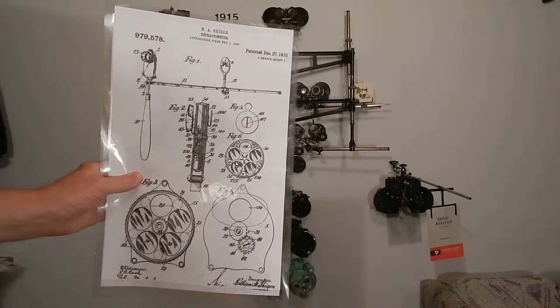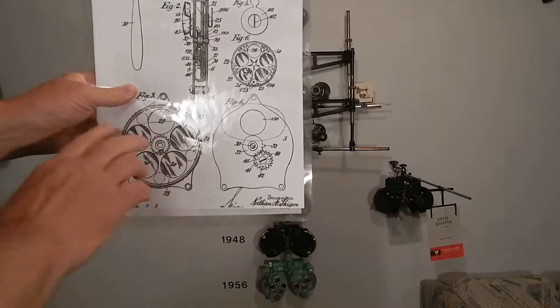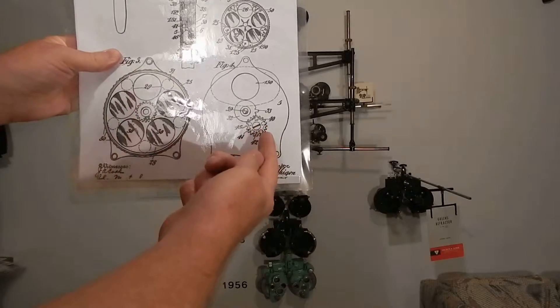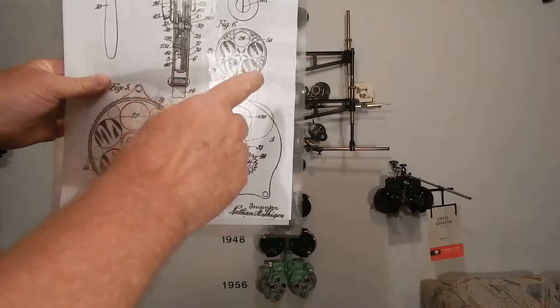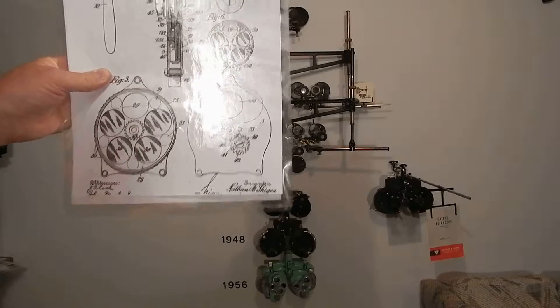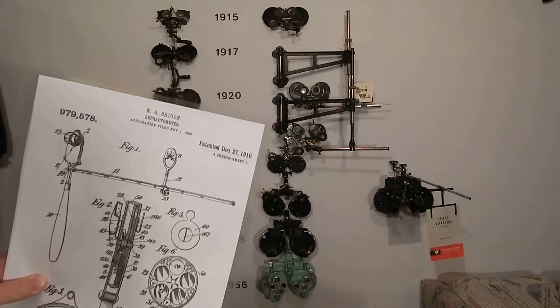It's all monocular, but what made it different from all the others is he had a mechanism where there's only eight lenses in this whole thing: 25, 50, 75, and 1 — and when you get to one, a gear clicks it up to the next four, which is 125, 250, 375, and 5. They're all plus. It gives a range from plano to plus 6, and that was monocular. It got the patent in 1910.